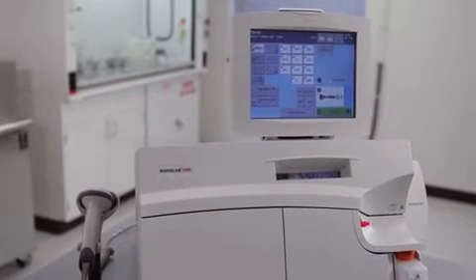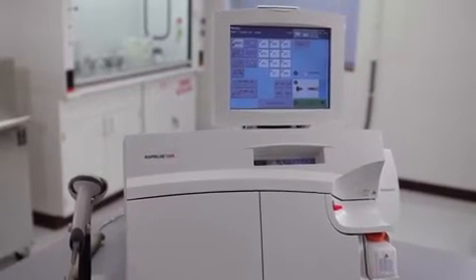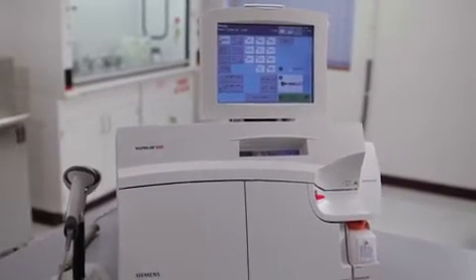Introducing the RapidLab 1200 Blood Gas System, a high-throughput analyzer that delivers test results in just 60 seconds.